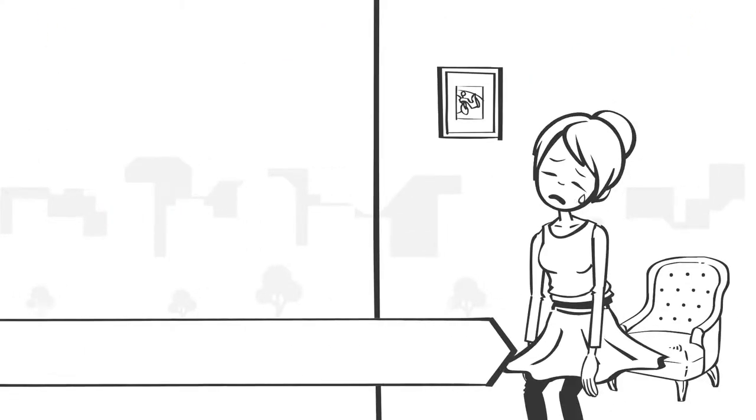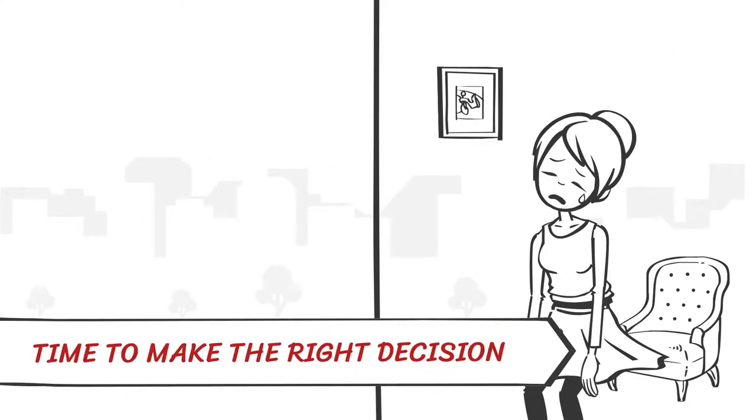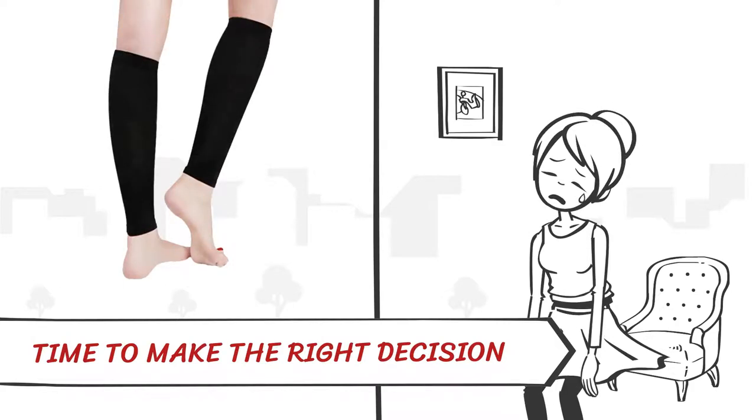If you've been suffering from any of the above, time to make the right decision and get your light, comfy, and pain-relieving socks today.